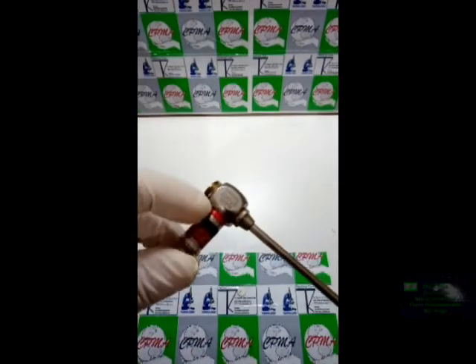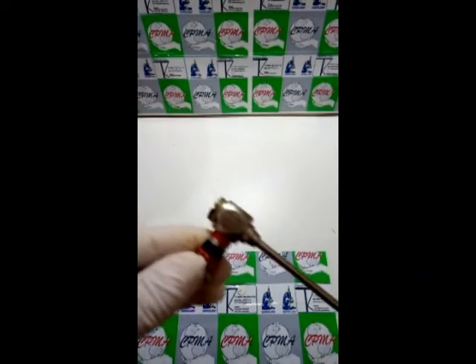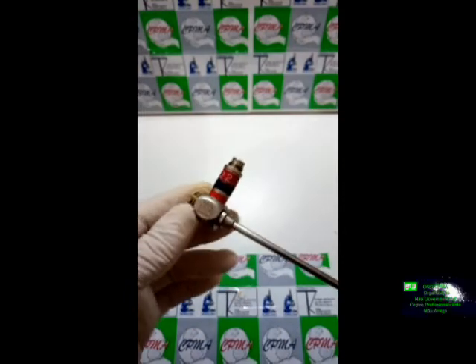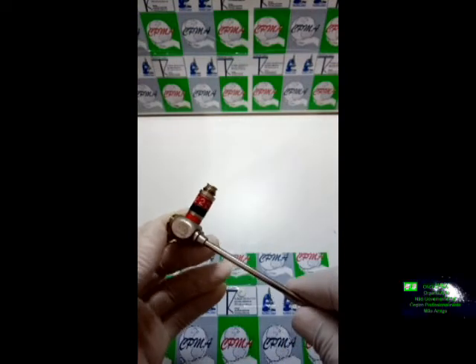Olhando a nossa ótica agora, o que foi que eu descobri? Que bem aqui, no pé do conector da fibra ótica, o fibramento óptico, tem uma pequena entrada aqui. Essa pequena entrada tem que ser calafetada — é uma cola especial. Cada ótica tem o seu sistema de colagem, de vedação. Onde eu encontro isso? No manual técnico de cada fabricante, de cada modelo. Aqui é o conector da fibra ótica. Depois de calafetado, nós vamos verificar se essa fibra ótica está com algum problema.